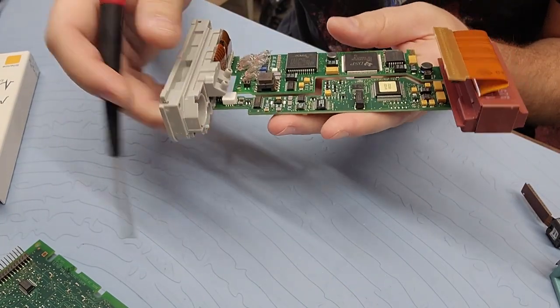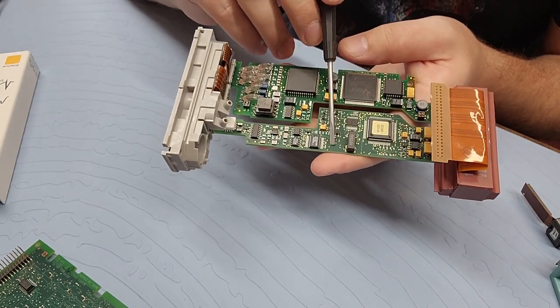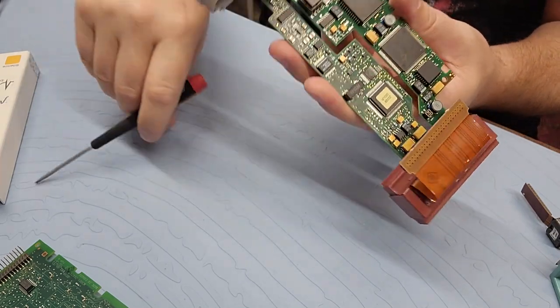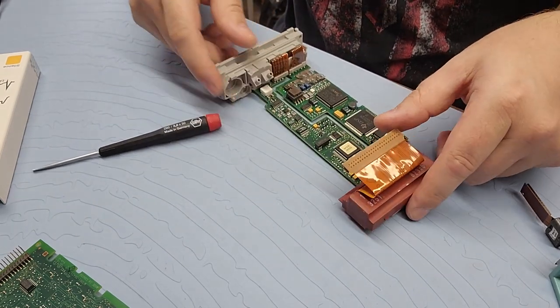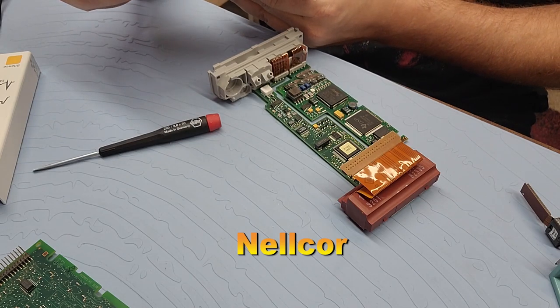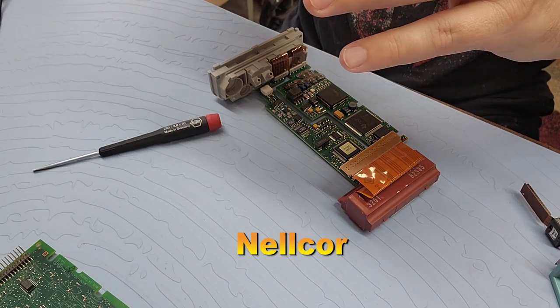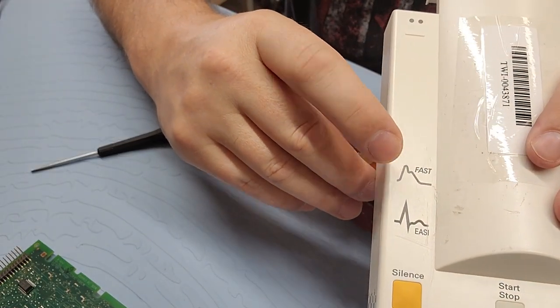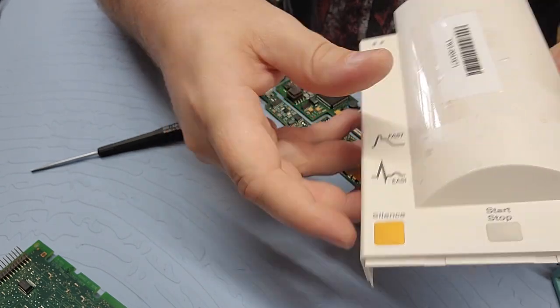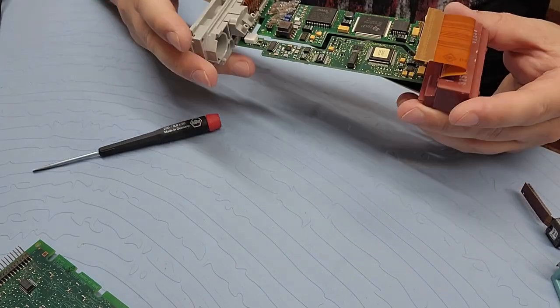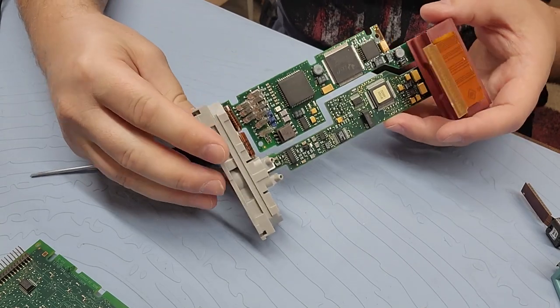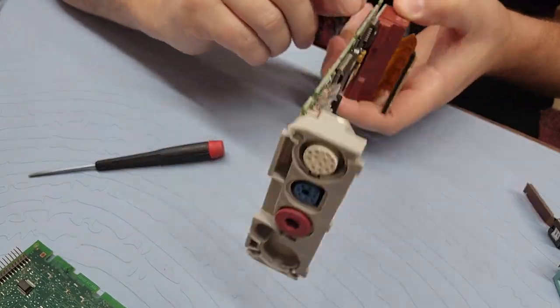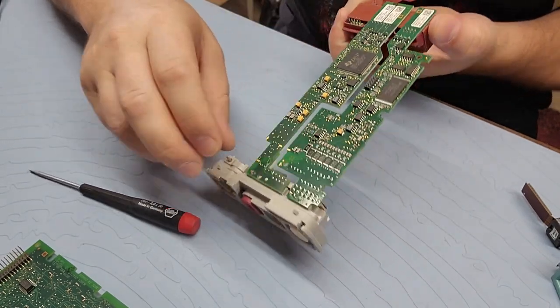I see also right here, there is an isolation transformer of some sort. Very neat. And the NIBP comes through here. The SpO2 is this board. Right here. So this board is going to be handling the SpO2. And I don't know which version of SpO2 is going to be on this unit. Is it going to be Masimo? Is it going to be Nellcor? You guys tell me. I don't really know. It's been a long time since I had to deal with these. But if you needed to swap out one of these boards, you could do so. So all you got to do is pull the port. And it's going to connect here to the back end. Just probably plug straight in like those ones. No problem.